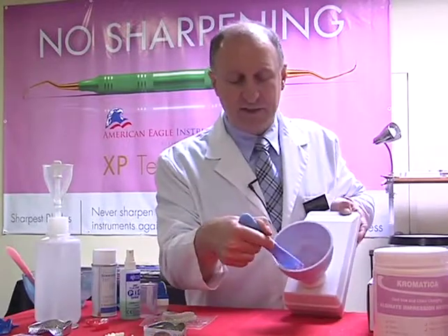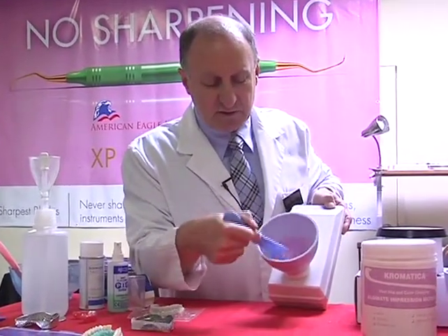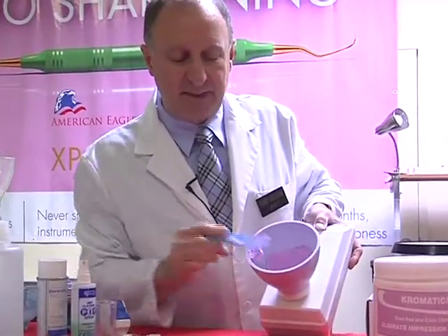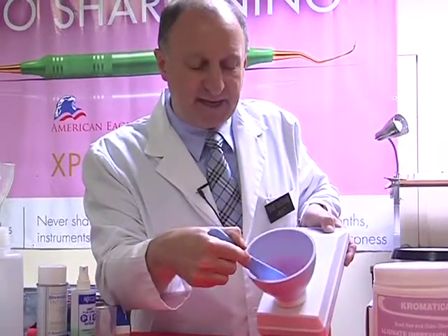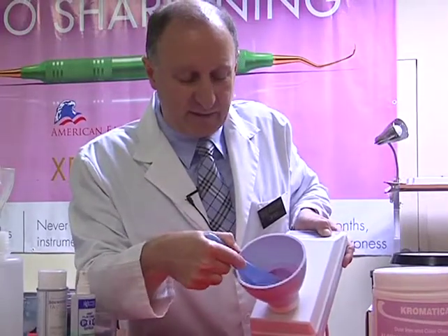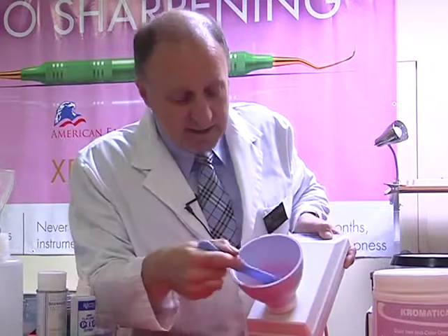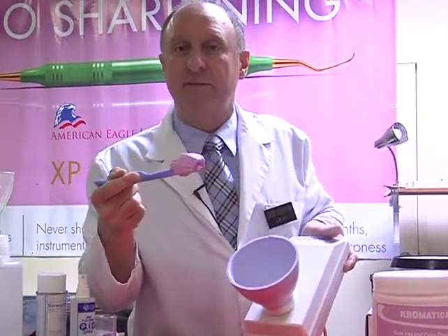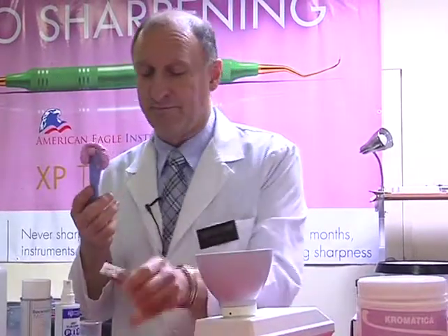So on the low speed, I slide the spatula to the bottom 3 times. 1, 2, and 3. Whatever wasn't mixed on the spatula, I'm going to pick up with the tip and drop it to the bottom, and do the same thing again now on the high speed. So just lightly slide it to the bottom 3 times. 1, 2, and 3. When everything's mixed, I'm going to pull out the material by sliding the spatula up the side of the bowl. And that's a simple way of how to use the material.